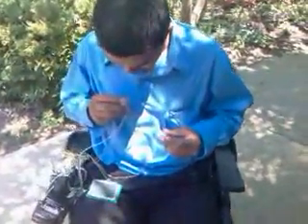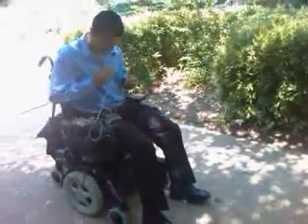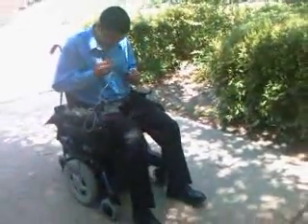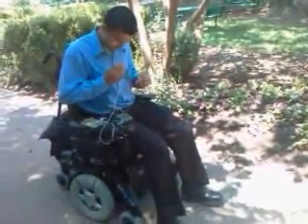Control left. That's right. Forward. Speed. 2. Stop. It's like your voice went on me, hehehe. Control. Right.